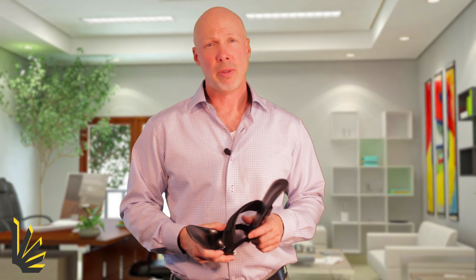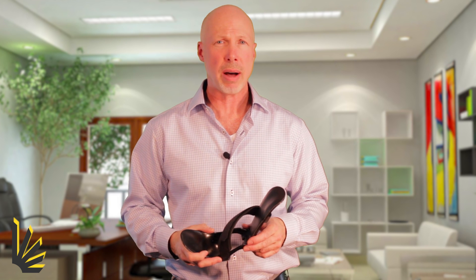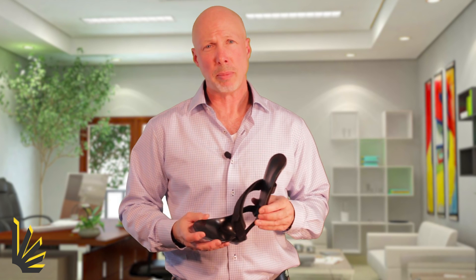Hi, my name is Ian Engelman, founder and owner of Insightful Products. I spent a career helping people walk, and I have a special interest in drop foot. I've designed the StepSmart brace, and this brace has helped thousands of people walk better.